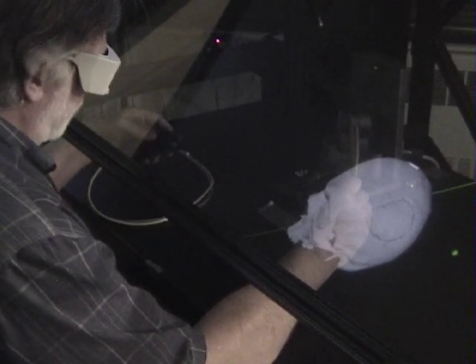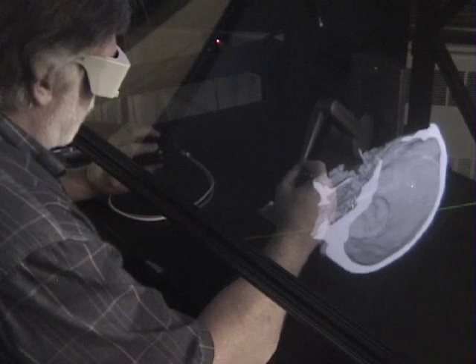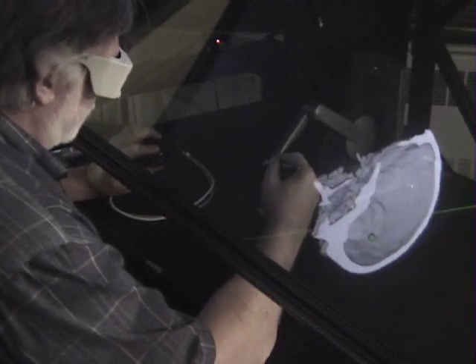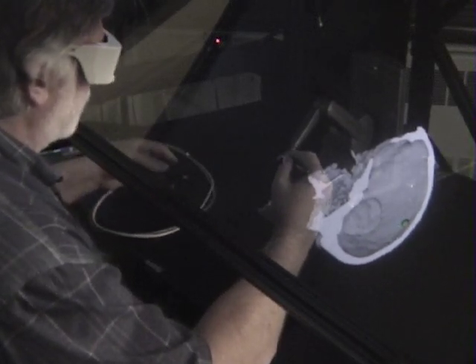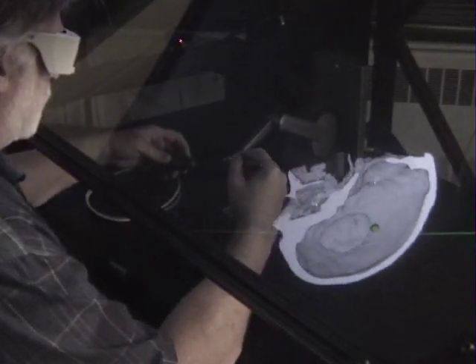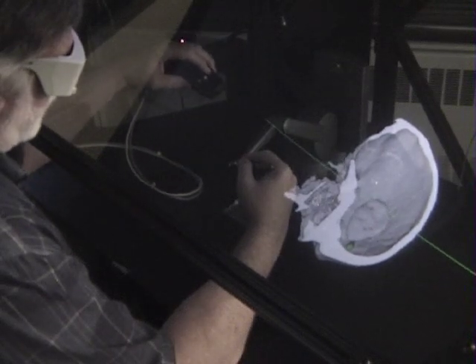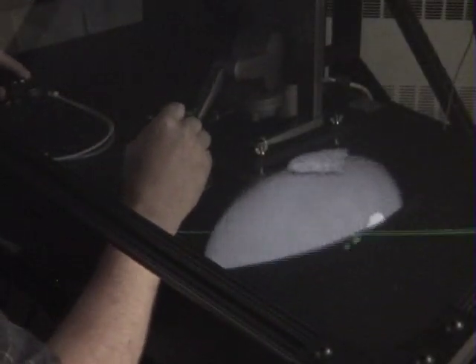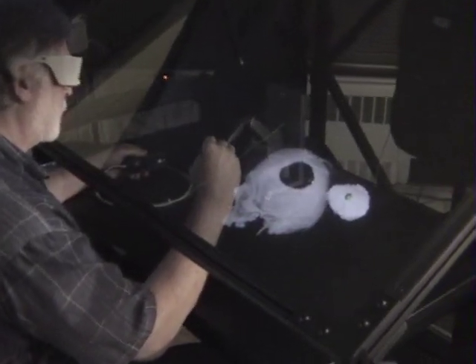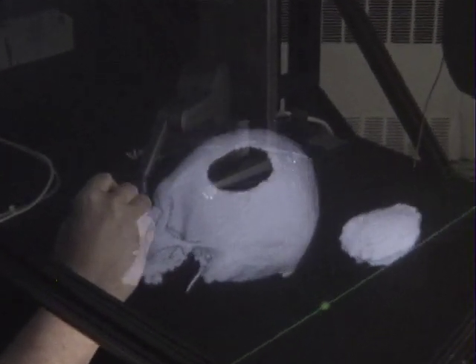In the process of sculpting, the implant actually gets caught in undercuts on the inner surface of the skull. There's a tool called the push tool that allows me to literally push from the back on the implant, and we'll remove those undercuts so that the implant will slip in and out of the hole in the skull very precisely, giving us just the precise fit that we want.